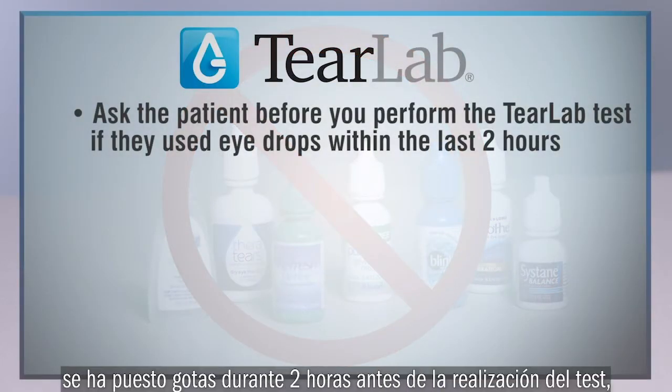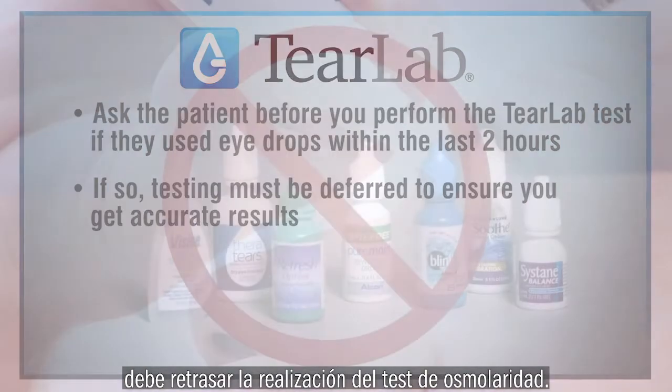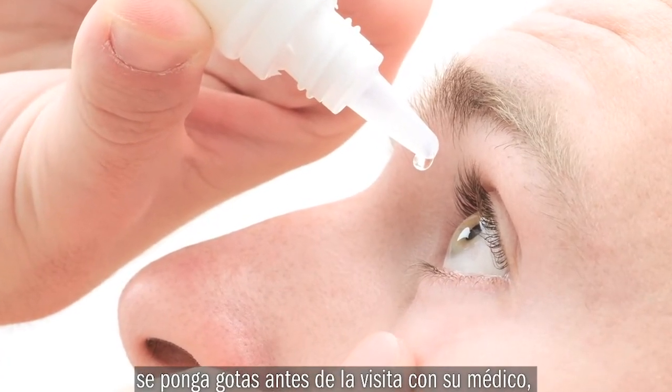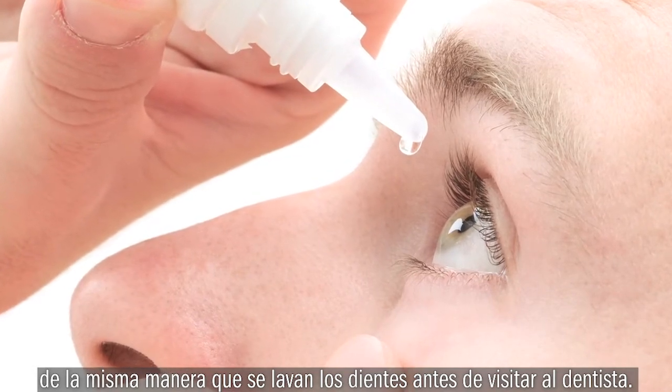Ask the patient before you perform the TearLab test if they used eye drops within the last 2 hours, and if so, testing must be deferred to ensure you get accurate results. Keep in mind that it is not unusual for patients to use drops prior to visiting the eye doctor, similar to how patients brush their teeth and floss just before visiting the dentist.